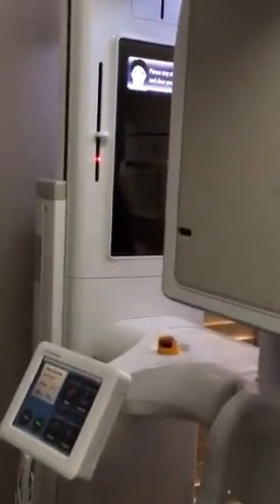The unit has 3 positioning lasers. There's the mid-sagittal up here. I think sagittal was the right word. And then there's the, oh gosh. Come on, somebody help me. The lasers, like here and here.